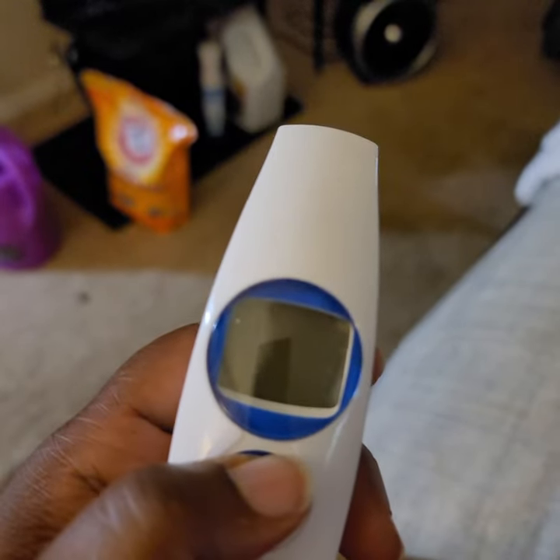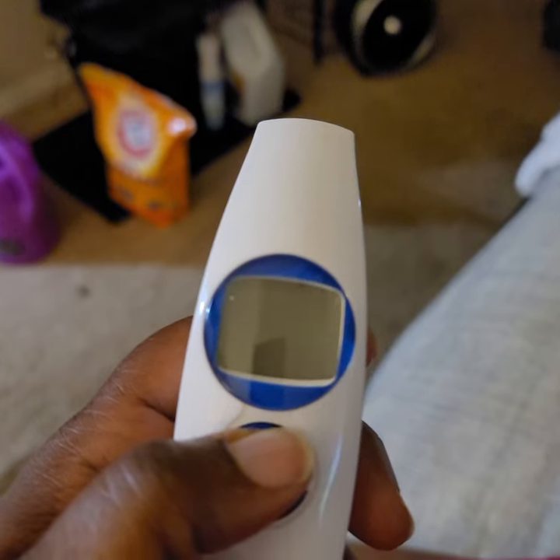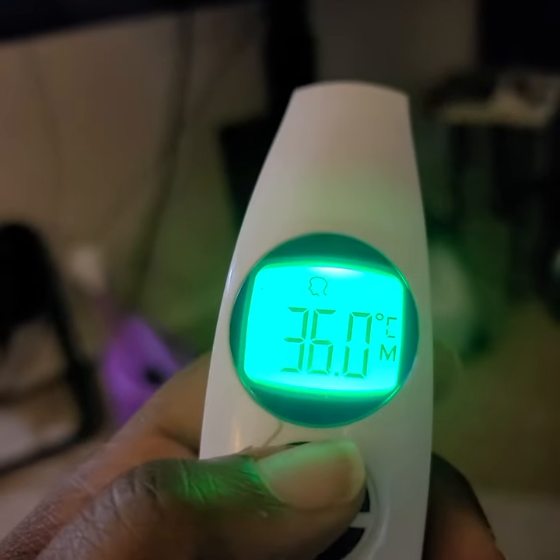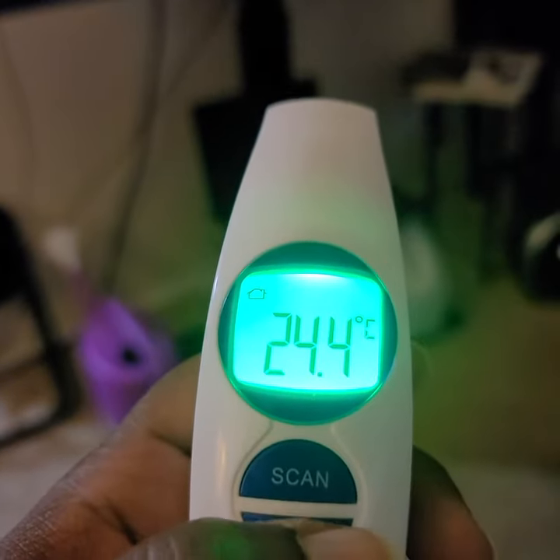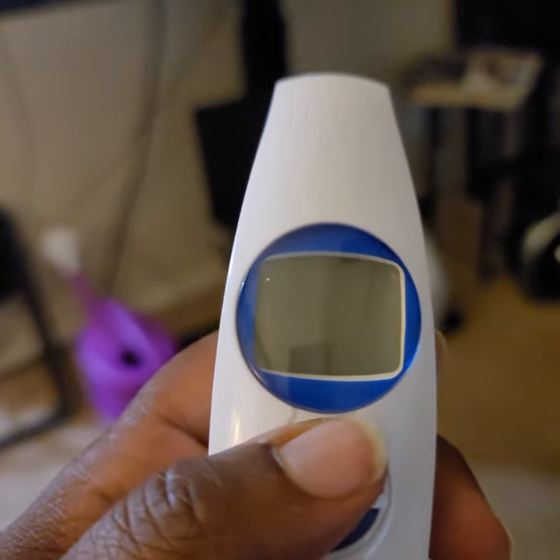I'm not sure if it matters — let's see, maybe it works on both. Yeah, it doesn't matter. So there you have it, it works. Switch it back over — we're scanning the room, it's 24 degrees Celsius in here. Don't judge my background.